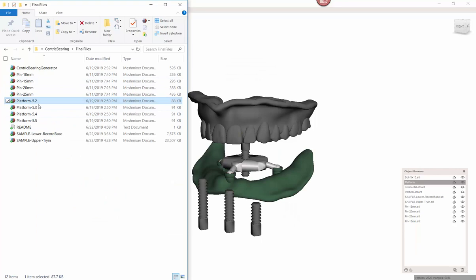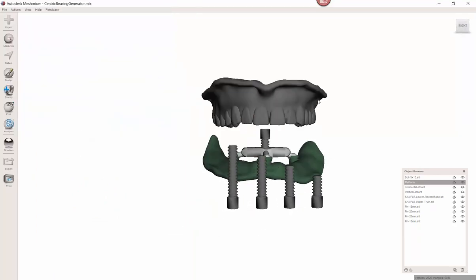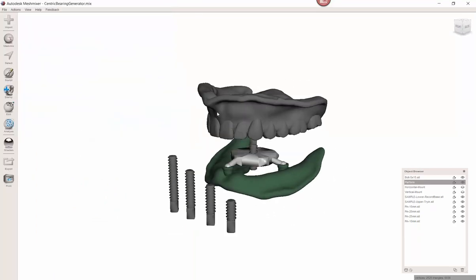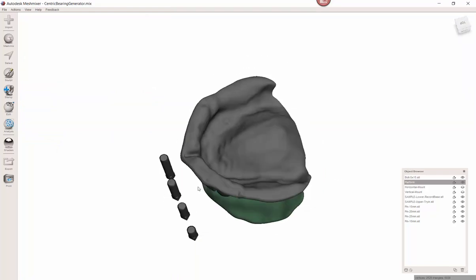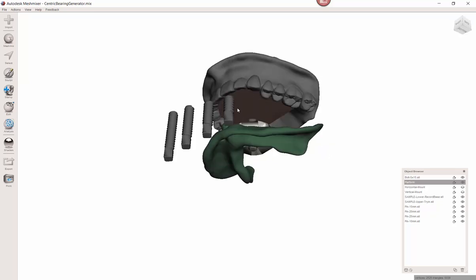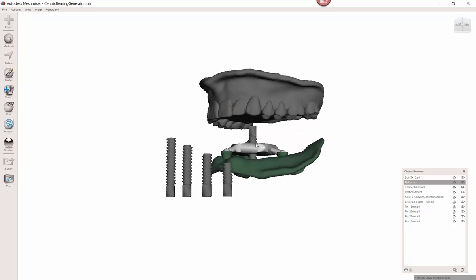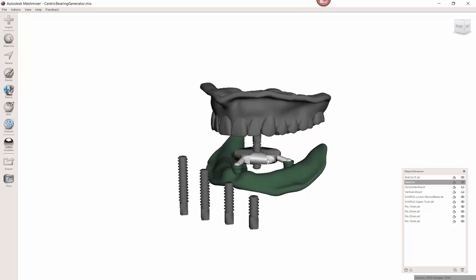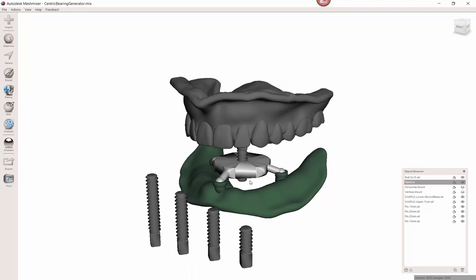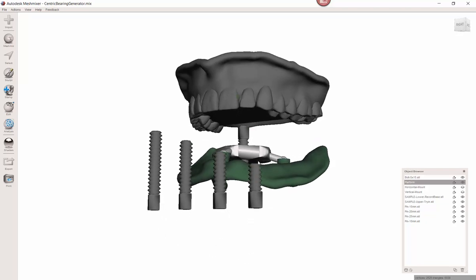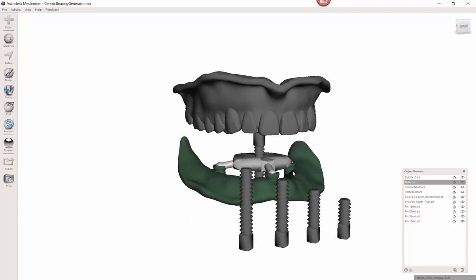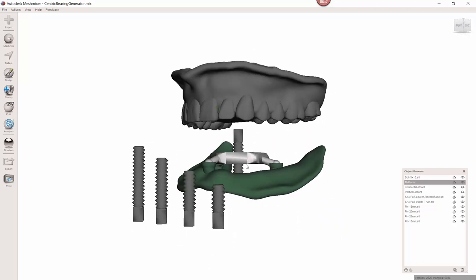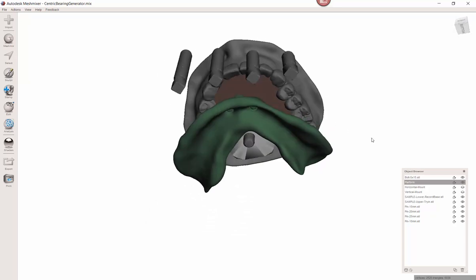And now I'm going to click on the plate itself. And I'm going to trim it the same way we trimmed those other connectors. So plain cut. Draw a line. Flip that over. Hit okay. Plain cut. Draw a line. Hit accept. And so now it's one, the denture and the plate can be combined. So the two things that are turned on, the strike plate and that. In fact, I'm going to click that one first. That way the name remains here. So we have the upper try-in. We have the lower record base. And we have the platform. So we can export each one of these objects. You can also export the bolt. And you've got everything you need to work with.